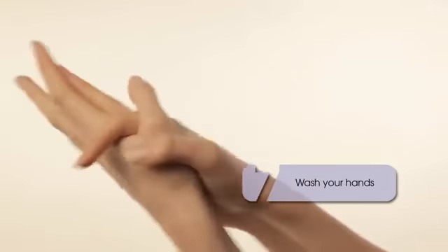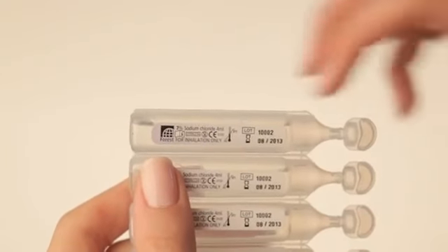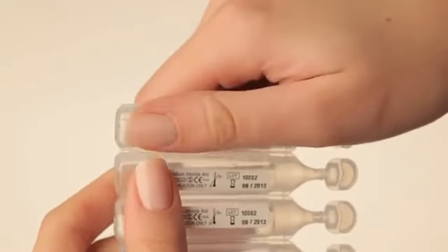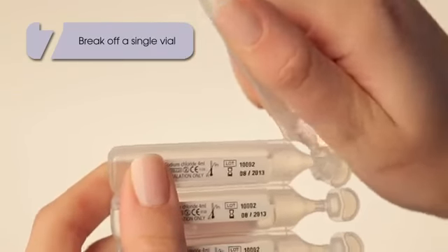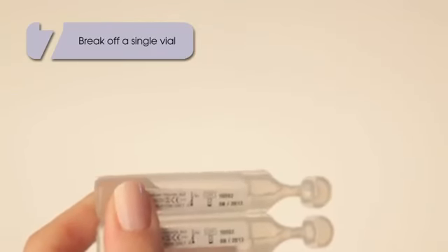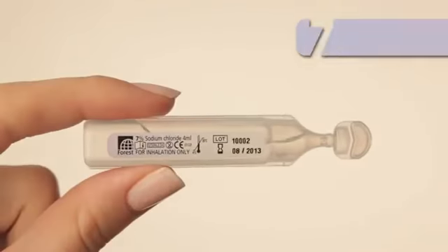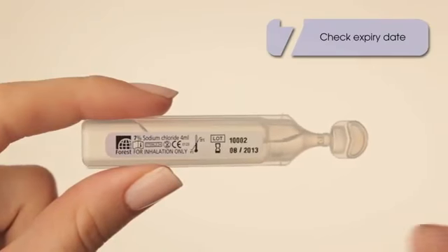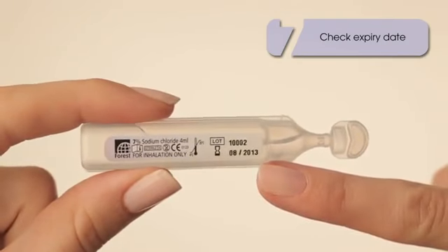Before handling any equipment, please remember to thoroughly wash your hands. One vial contains the right dose for you, so break off a single vial. Make sure the product is within its expiry date, which can be found here.